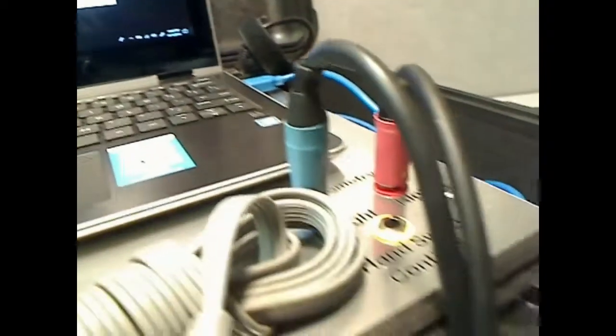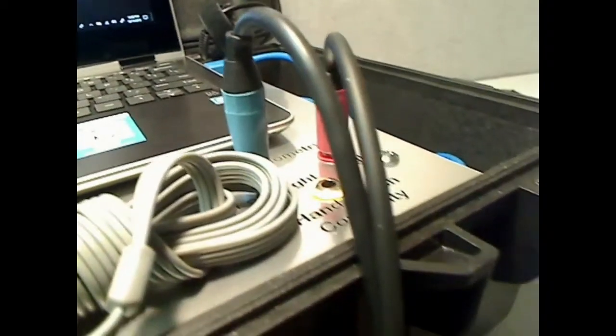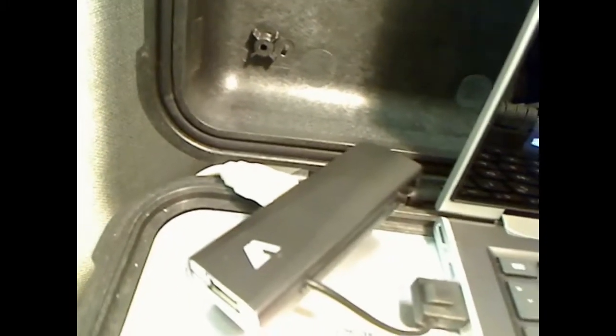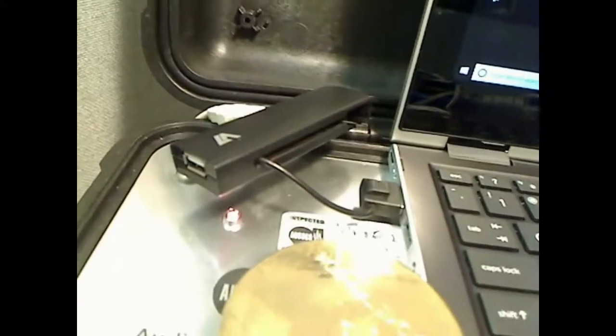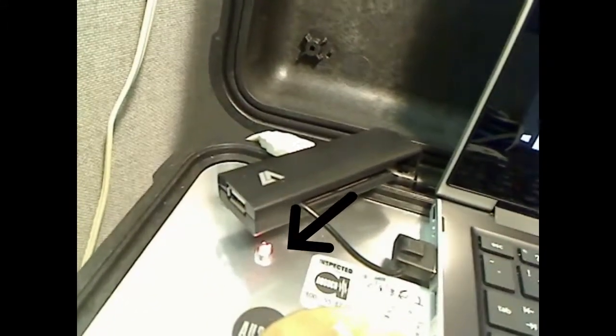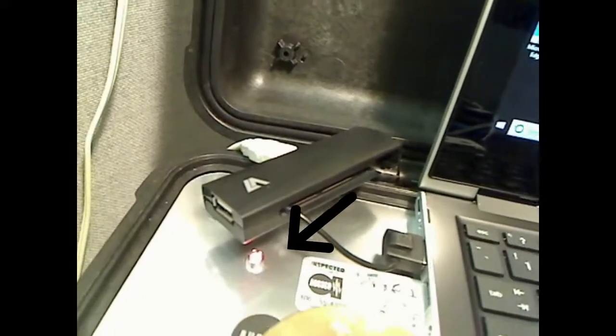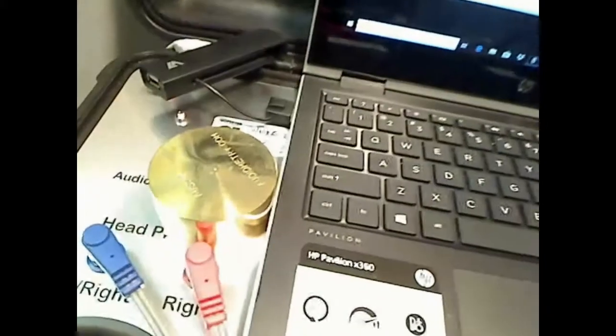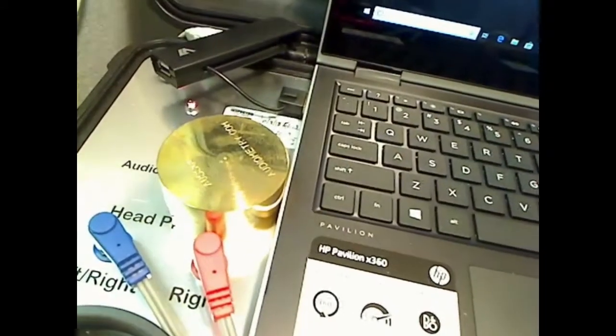All I have to do. Now, here's the patch cords. Patch cords coming out of here, going around, they're connected back to the back of the audiometer. That white cable coming out over there is the USB. It powers around over here and it comes around and it's plugged in right there. That just happens to be an expansion thing for USB plugs. See a little red light down over there, it doesn't show up very well, but that says the system is on and working. There's the weight for it and there's the headphones that are plugged in where it says headphones.